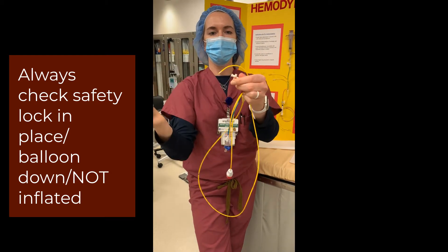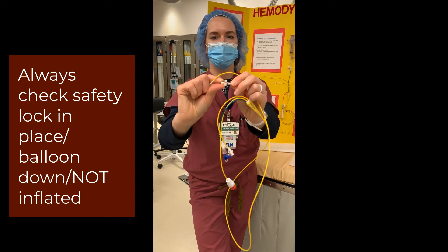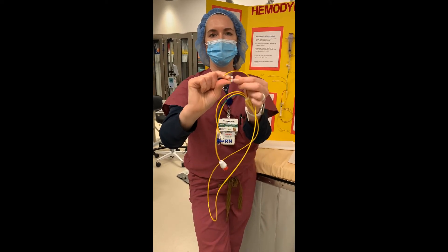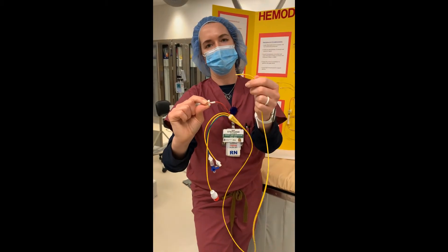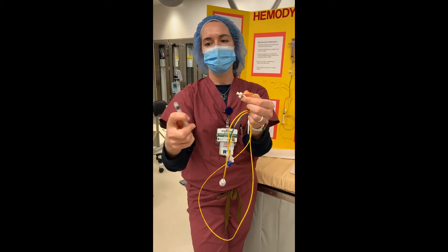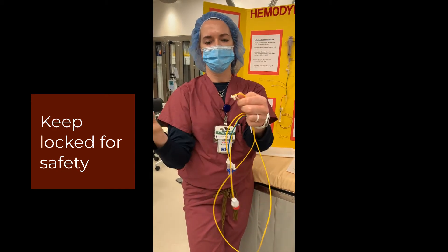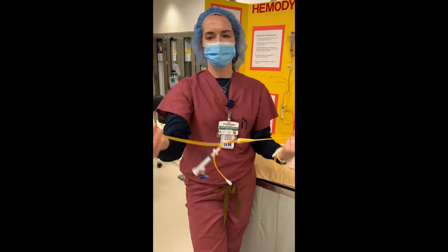What you want to see upstairs is no air in the syringe and the valve closed — see how the lines do not line up anymore? That is a safety mechanism. You don't ever want this balloon to inflate unless you are intentionally inflating it. You can see how accidentally it could get inflated very easily if you leave it unlocked, so the safety mechanism is to always leave it locked like that.